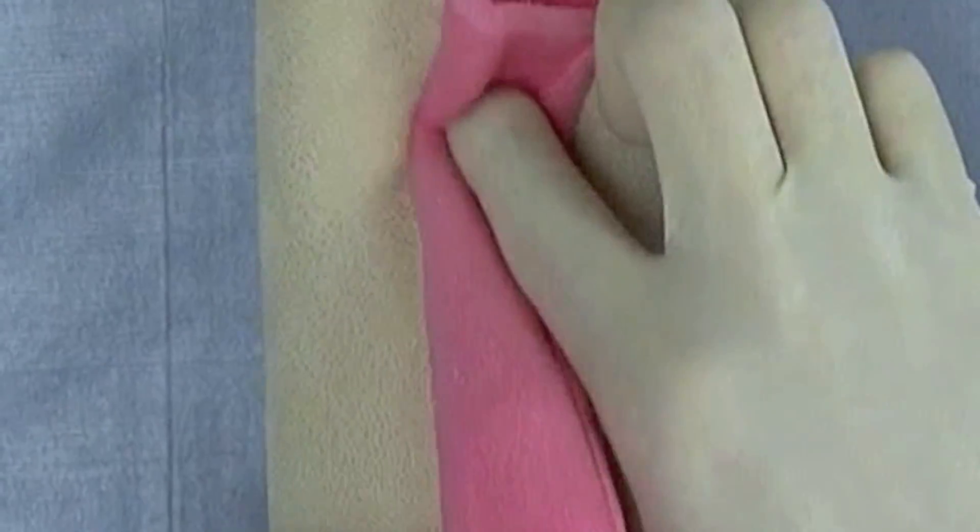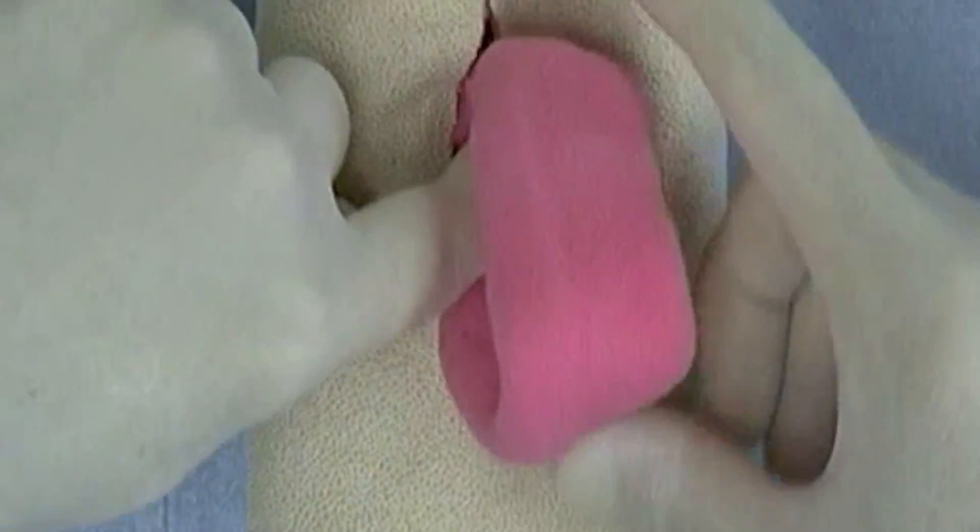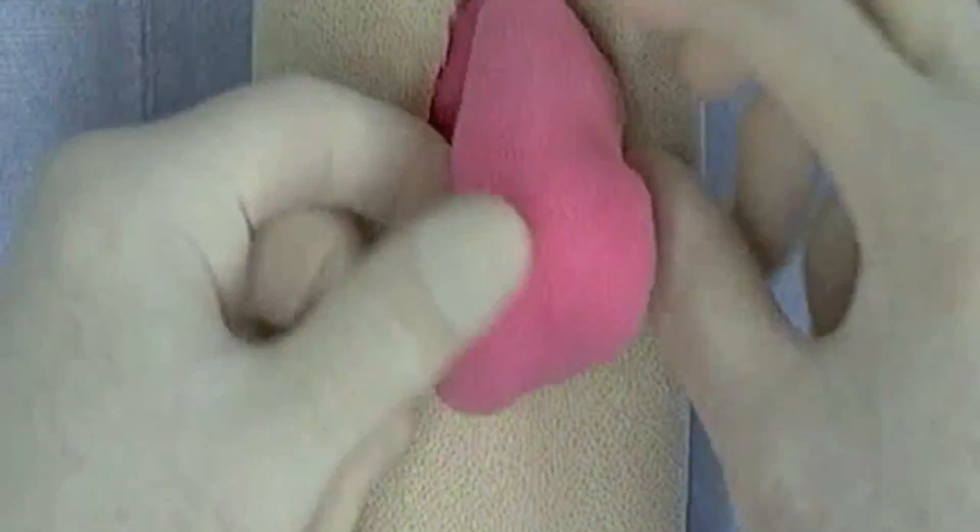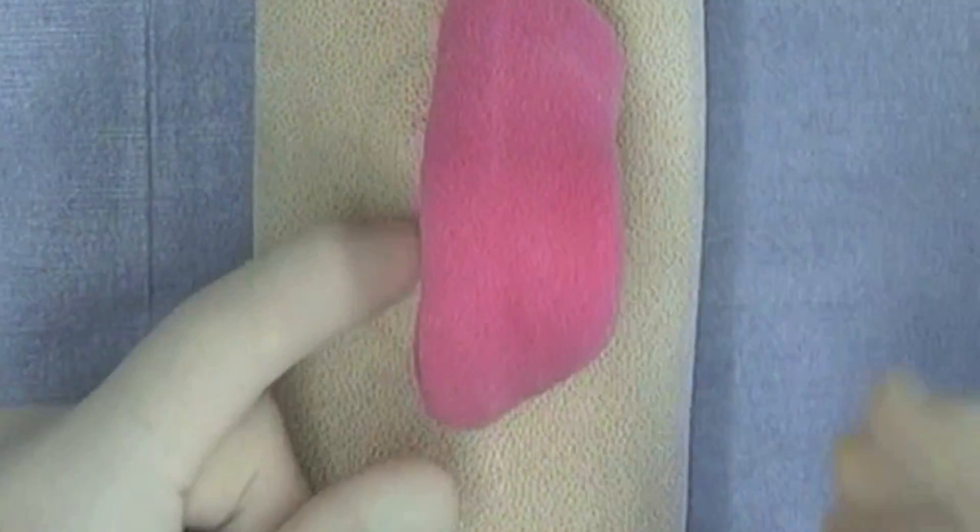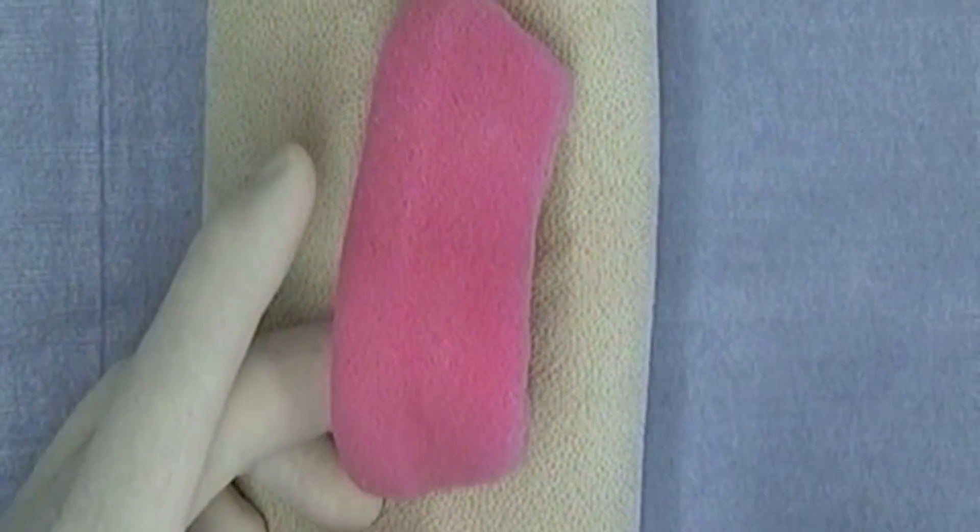What you'll need to do to practice your inverting patterns designed for viscera is to pull some of the pink intestine out. Then you'll be using the intestine for patterns such as the Lembert, the Cushing, the Connell, and patterns such as that that are designed specifically for viscera.